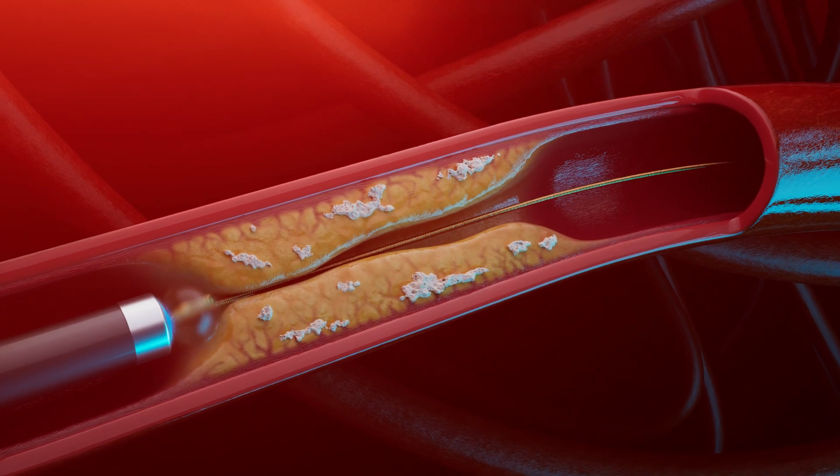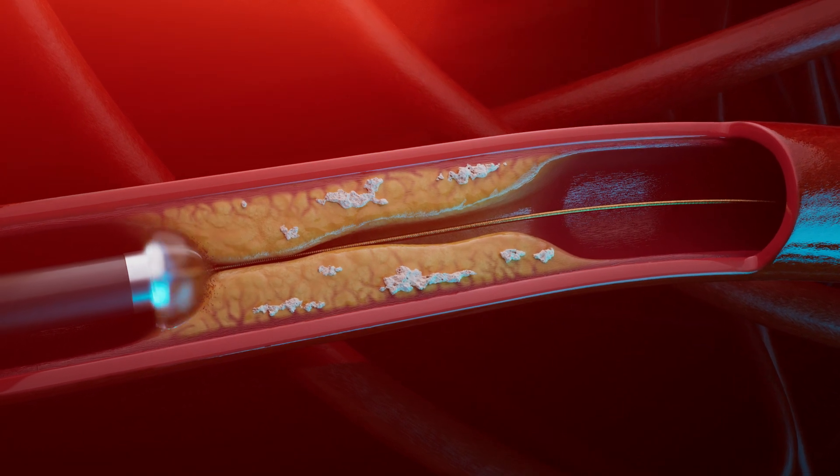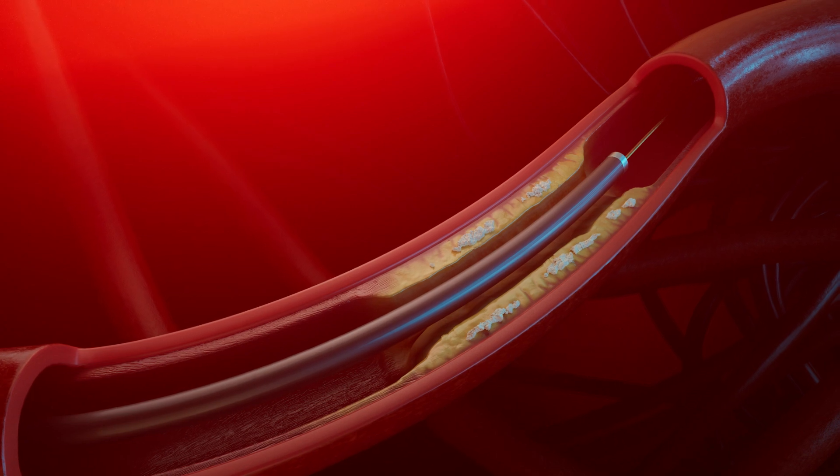This entire cascade of events happens 25 to 80 times per second. These three mechanisms of action provide the power to get through complex lesions.